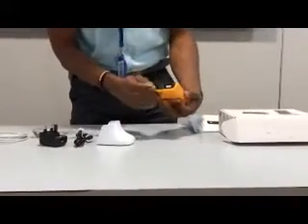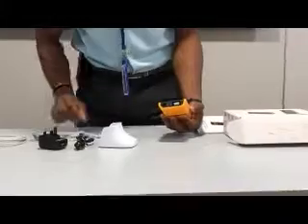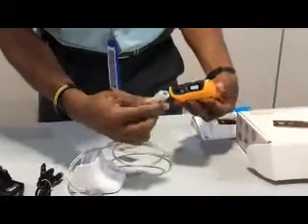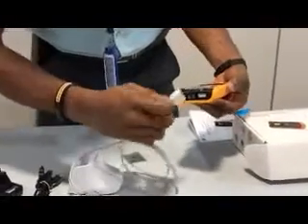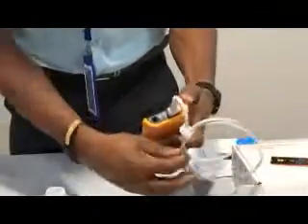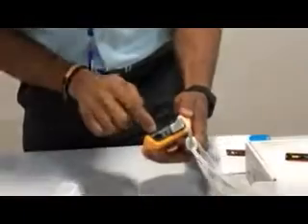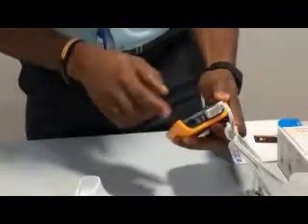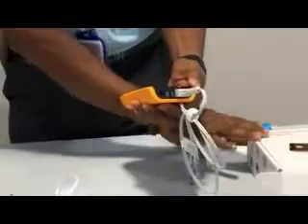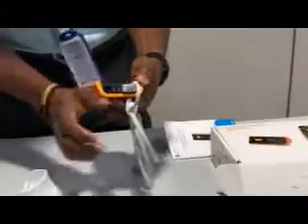On this device, I have this port — there you plug in your SPO2. We are going to plug in the SPO2. As you can see, it has six pins. You plug it here. Then there is another opening there for temperature — this is for the temperature probe. But we don't have the probe here; the device didn't come with a temperature probe. It came with only the SPO2 probe, not the temperature probe.